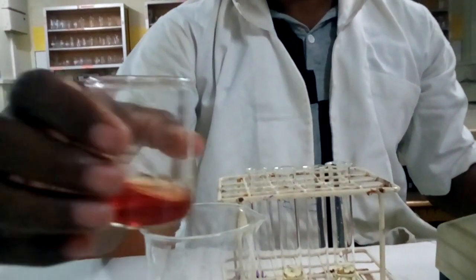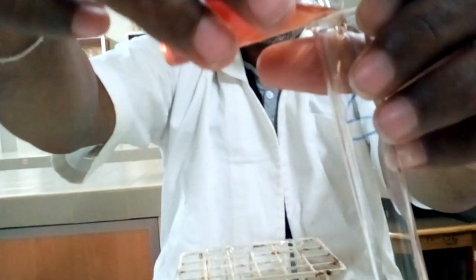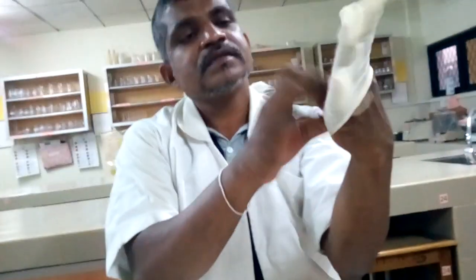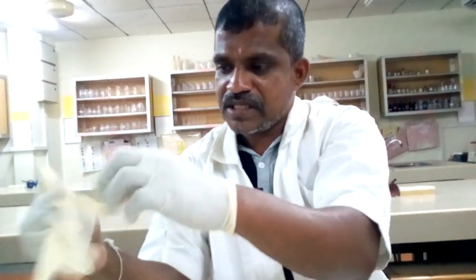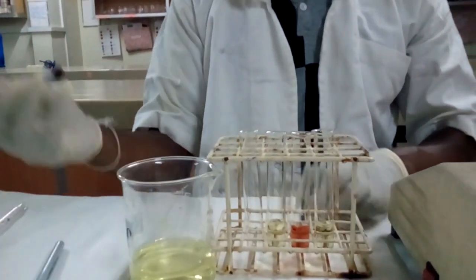We can put the standard directly into the tube labeled as standard. We put the available reference standard directly into the tube which has been labeled as standard. Then when we are using the blood sample, we have to wear gloves. Always we consider the blood sample as a pathogenic or infection-risk sample, a risk material. So because of that, we wear a pair of gloves and make the EDTA blood sample homogeneous by inverting it 8 times.